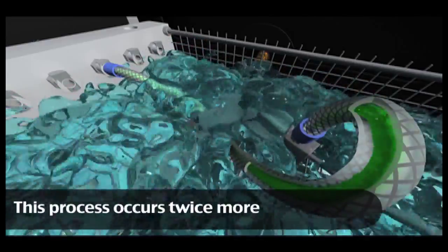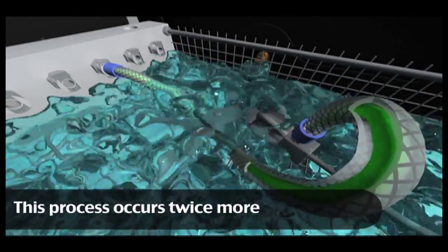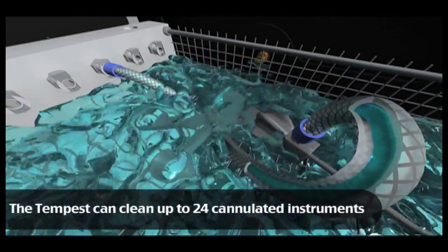The solution steeps within the interior of the lumen for three minutes, allowing it to eat away at the bio burden and loosening it for the hydrojet flushing.